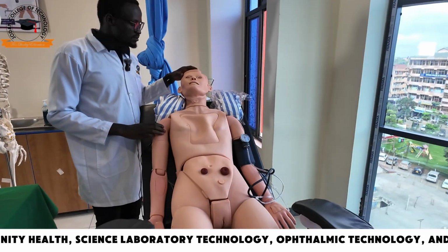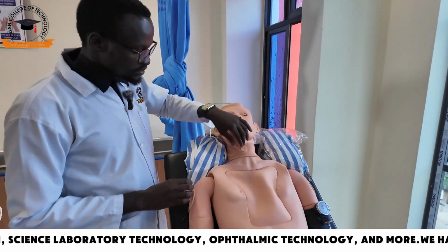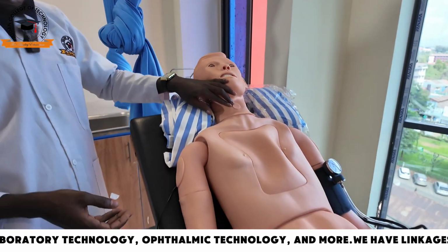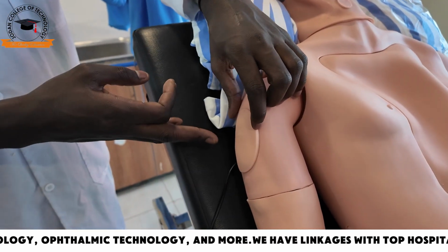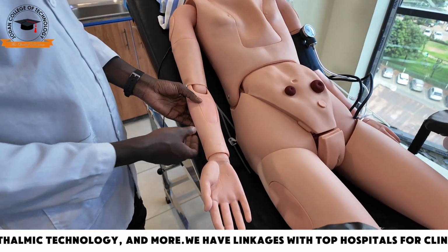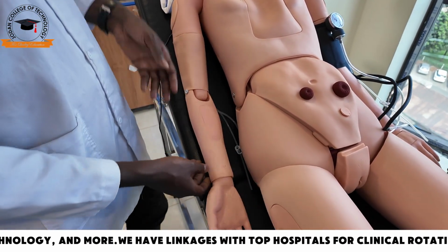You can also use it to demonstrate dental hygiene. You can also use it to demonstrate tracheostomy care. You can also use it to demonstrate how to perform various types of injection. Here we can have intramuscular injection in the deltoid region. We can also have how to perform intravenous line insertion for giving intravenous fluids.